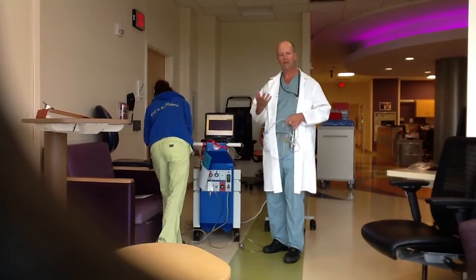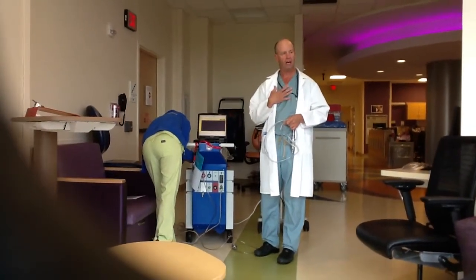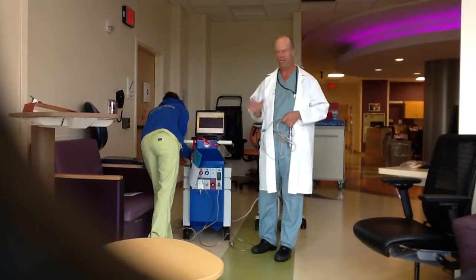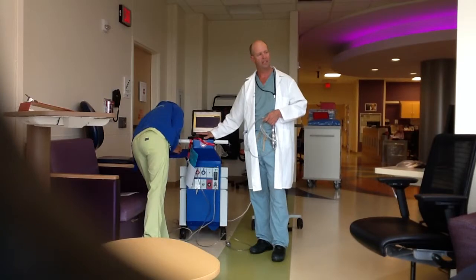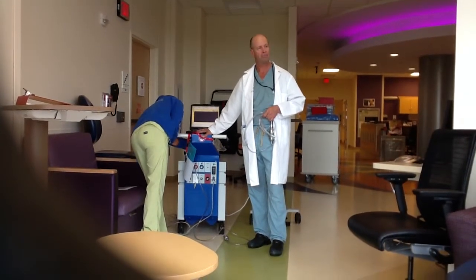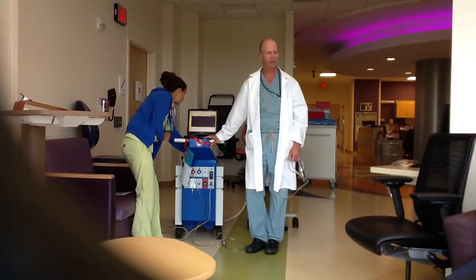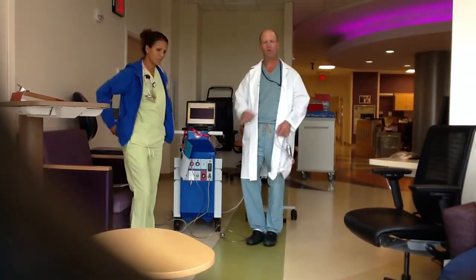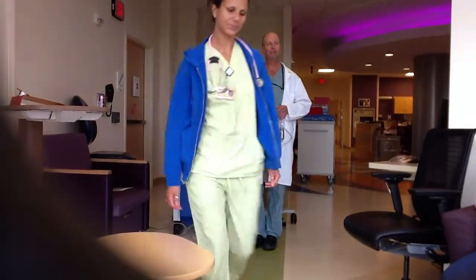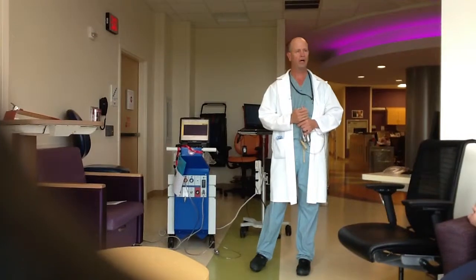One other thing I should say: if you are hand pumping and we arrive, don't stop. Because it takes almost ten minutes for us to get the backup console up and running. So you've got to wait until we get here — just keep hand pumping and we'll be with you shortly. There's no quick way around that.